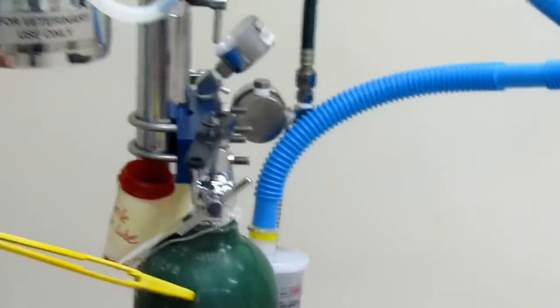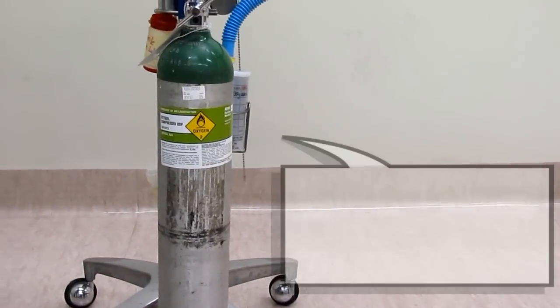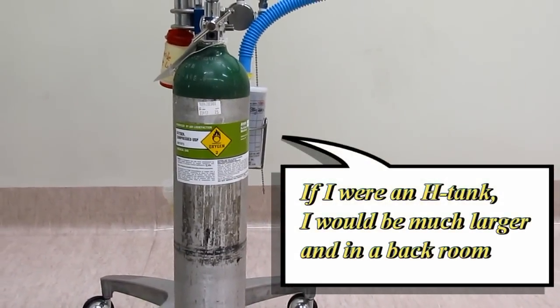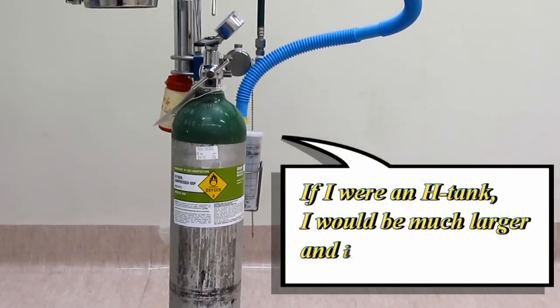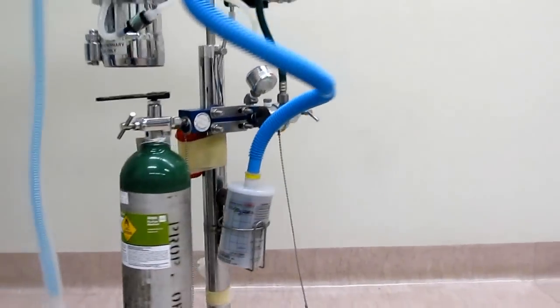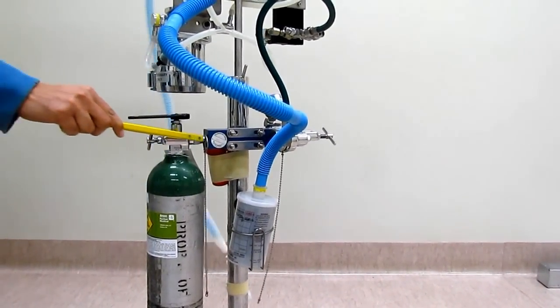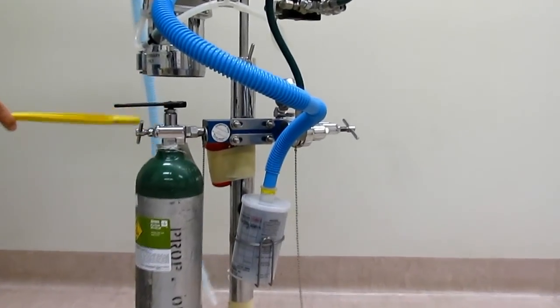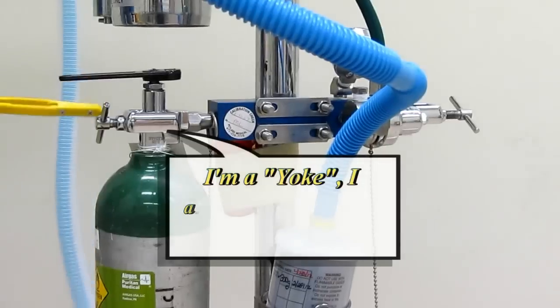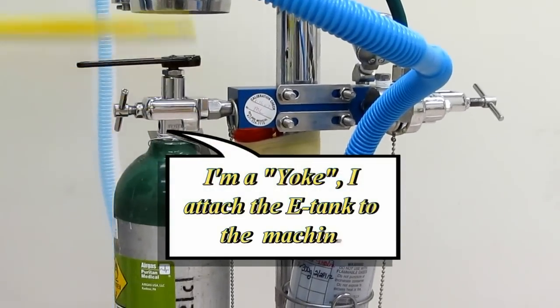This is as opposed to an H-tank. An H-tank is a much larger tank that is usually installed permanently in the back of the hospital and is connected via a network of green hoses through the hospital and to various machines. The first component is the yoke. This device here is the yoke. It has this dial which attaches the E-tank and secures it to the machine.